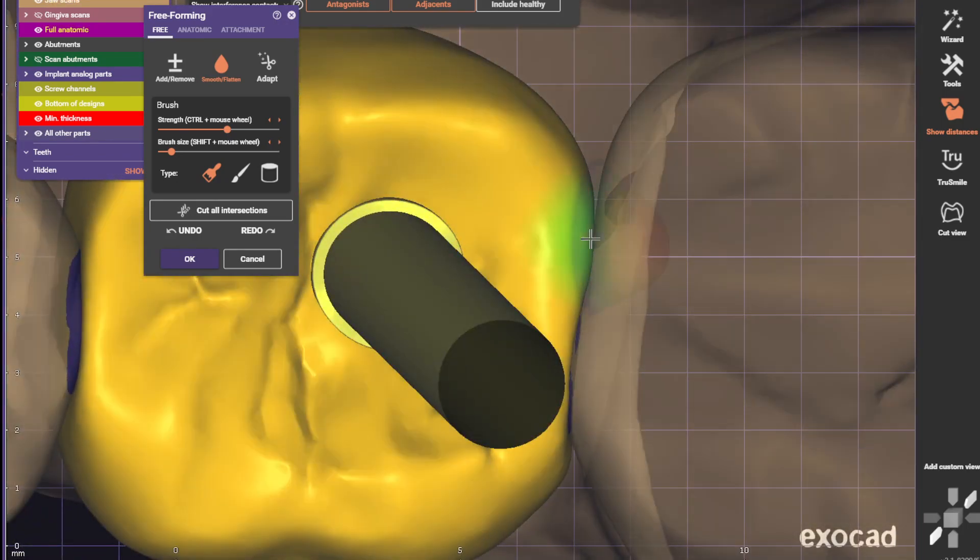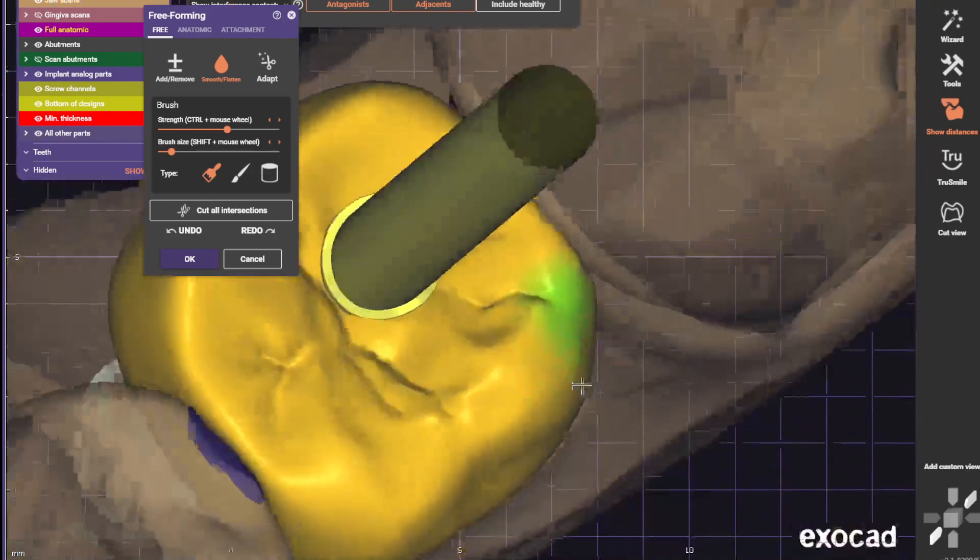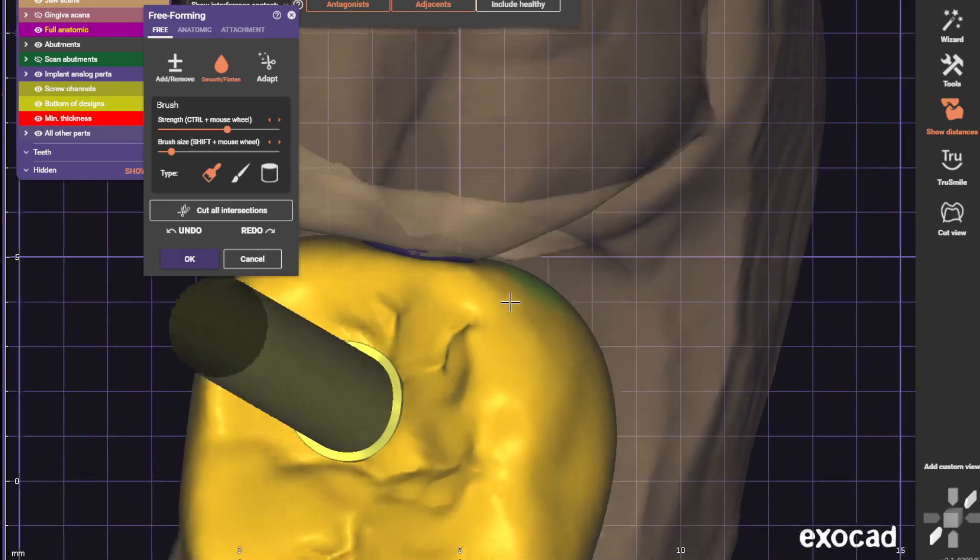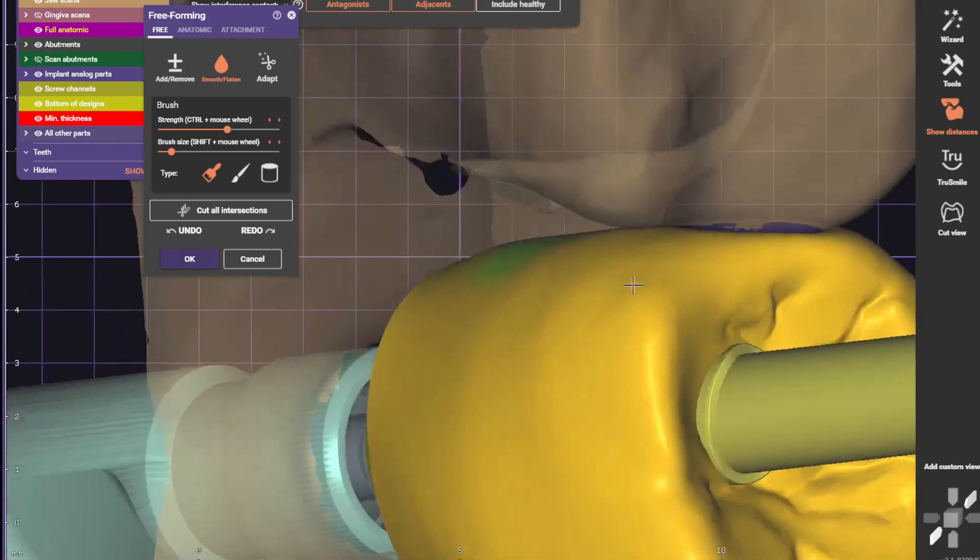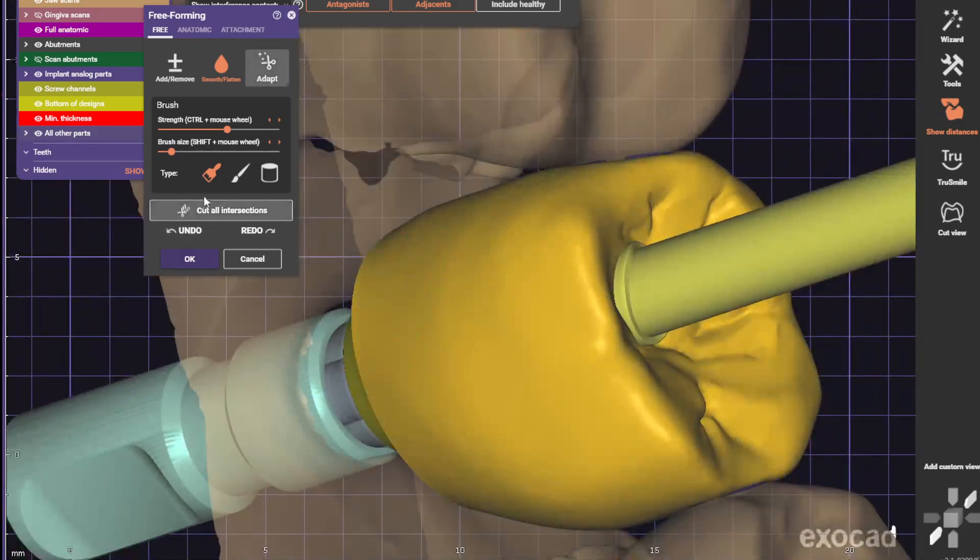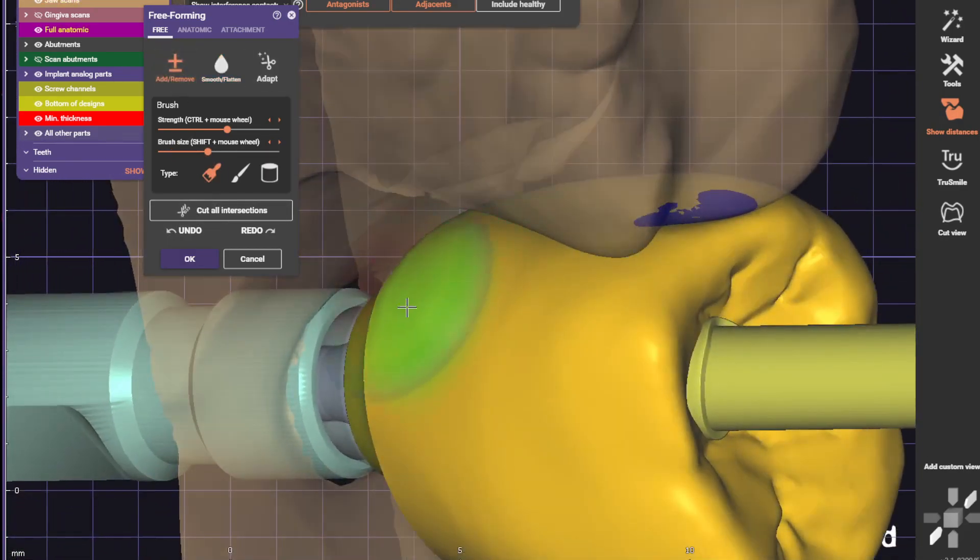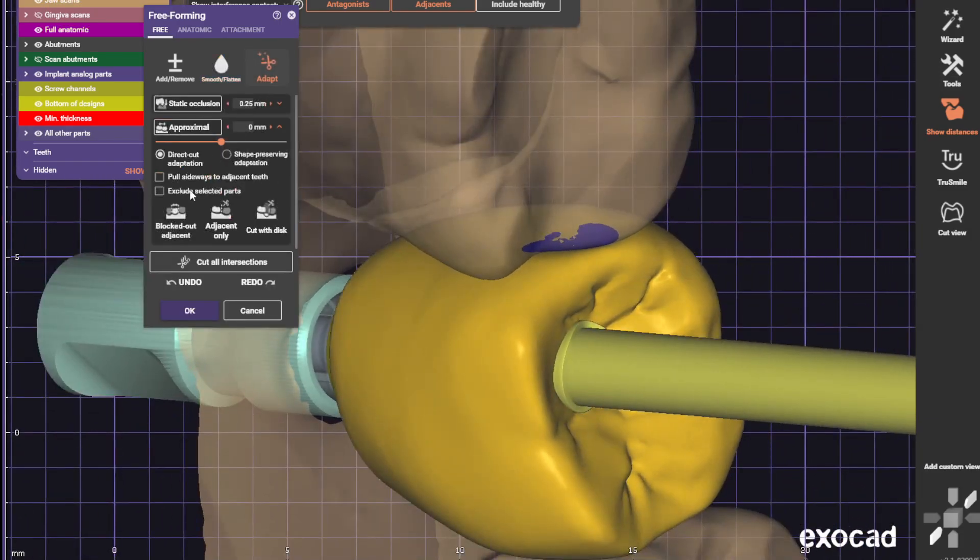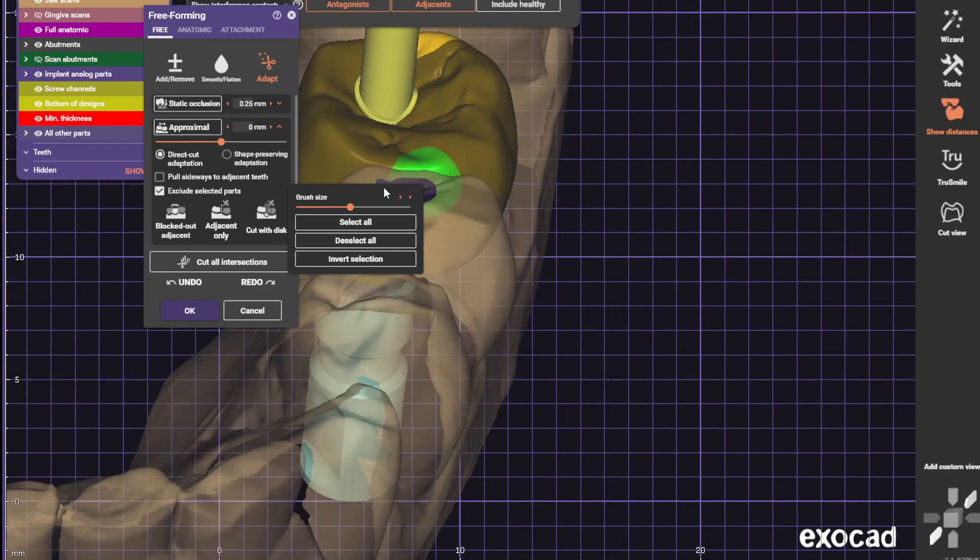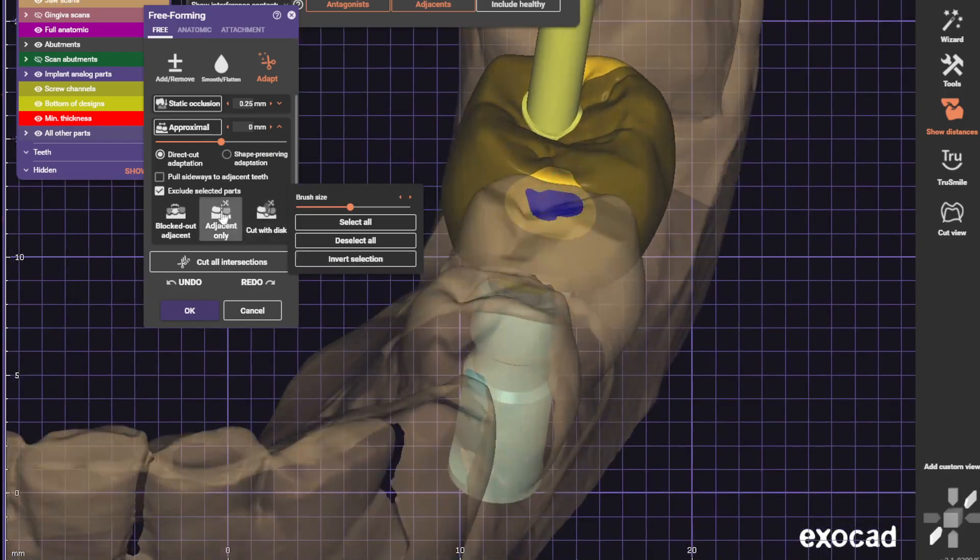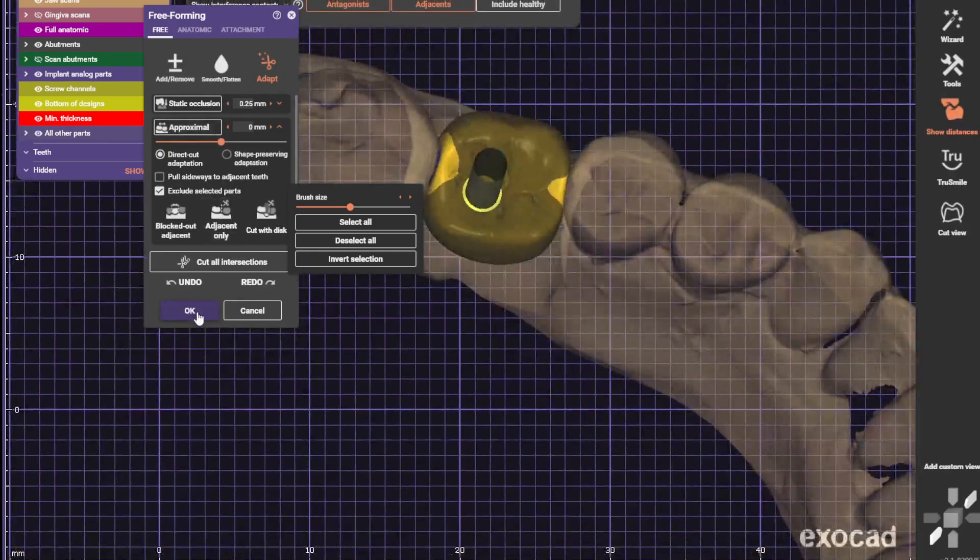We're going to adapt these contacts one more time. I always do it again after a second time. Cut, and that's it.